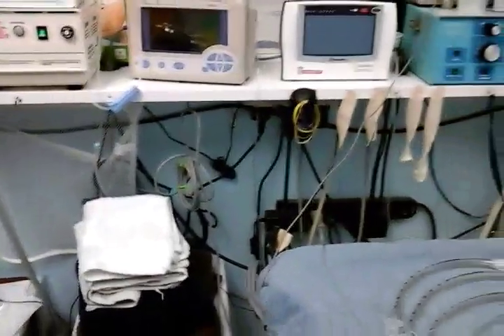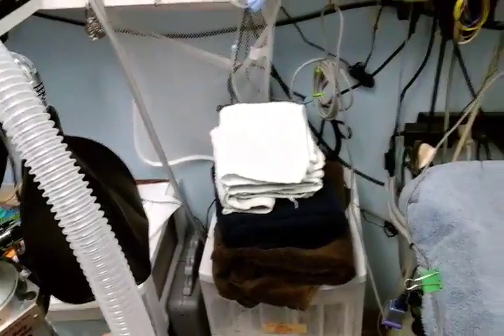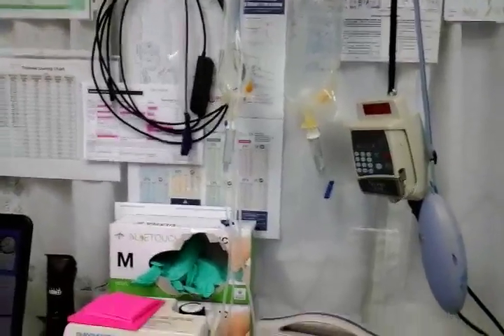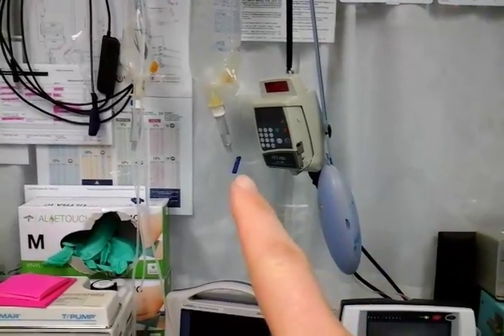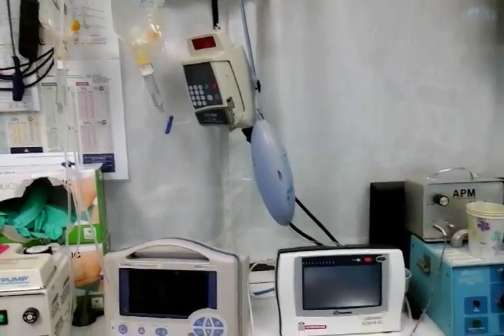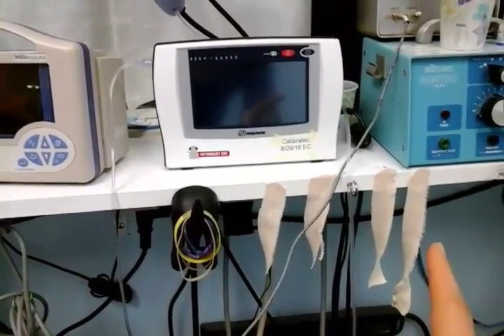I will go and get a set of large towels for my table. Hand towels with extra towels. I will then get my IV sets ready, flush the lines, connect it to the IV pump, the IV fluid warmer. Make sure there's no air in there. Make sure your little crimper is open. Make sure the roller wheel is open. I will cut pieces of elasticon tape for each size patient.